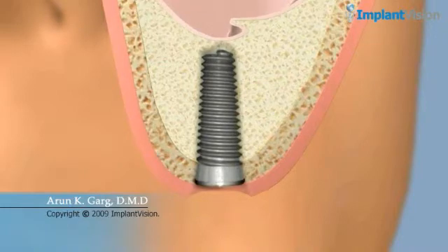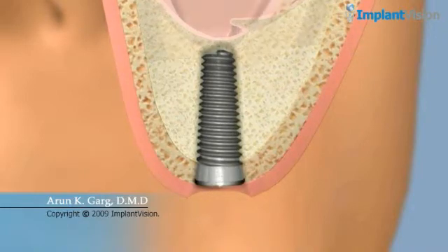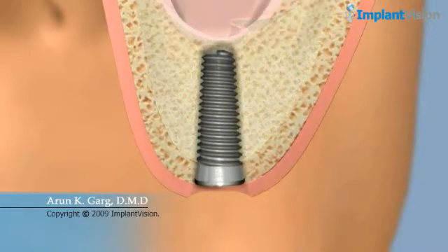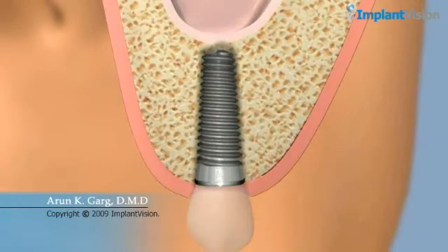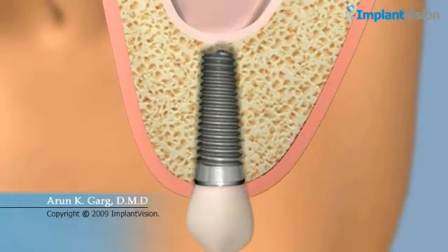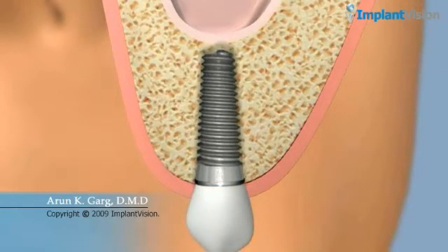Over time, the implant and substitute bone will heal, creating a strong bond and stable foundation for your new replacement teeth.